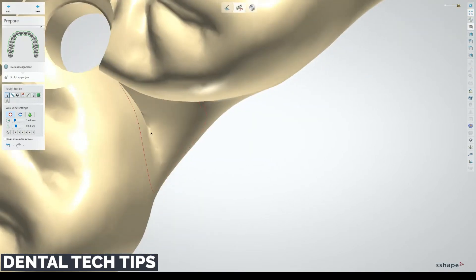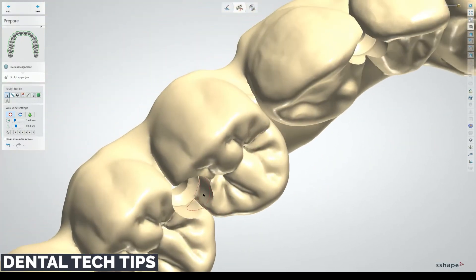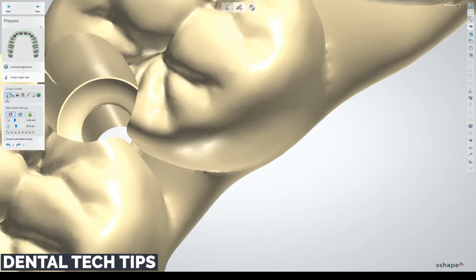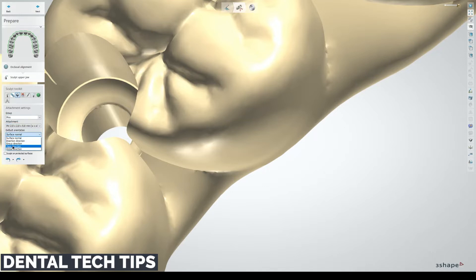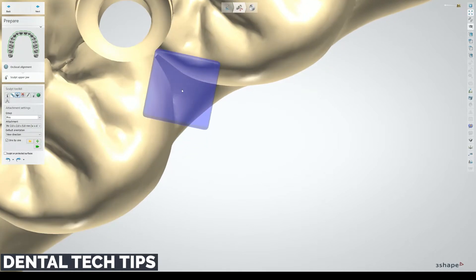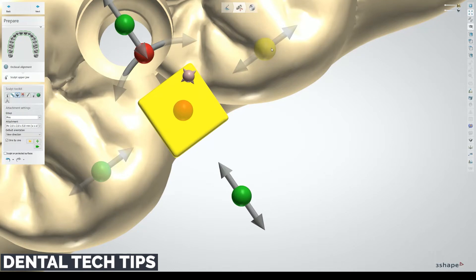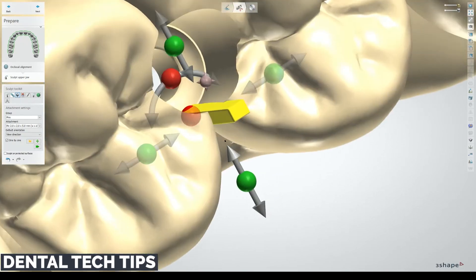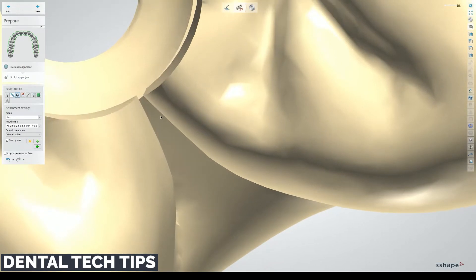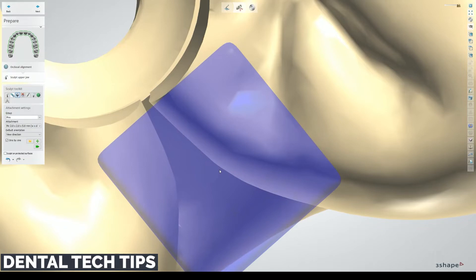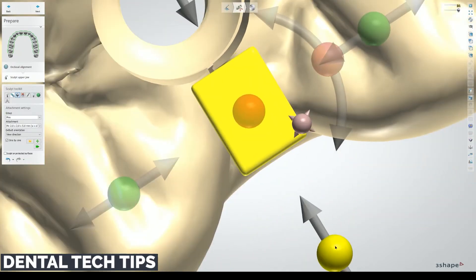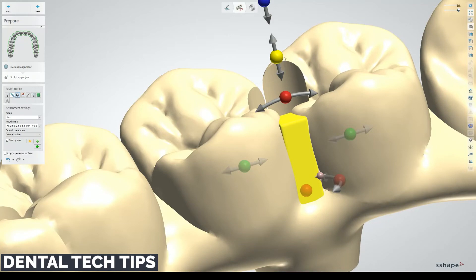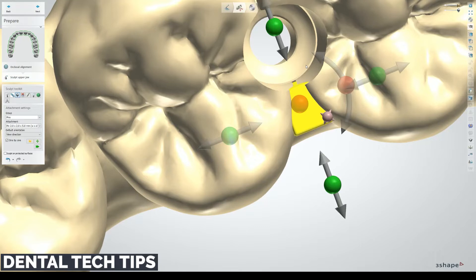This one is kind of the biggest trouble spot here. Obviously you can't sculpt these together very well. I mean, you can do something like that, but then you're kind of ruining the cylinder geometry. What I would do here is actually use an attachment, a pin, two by two, view direction. Line it up this way. Rotate. Bring that into place there. Maybe my view direction was just a little bit off, so we'll do that again. We'll chop this down below the embrasure there. Apply that attachment.